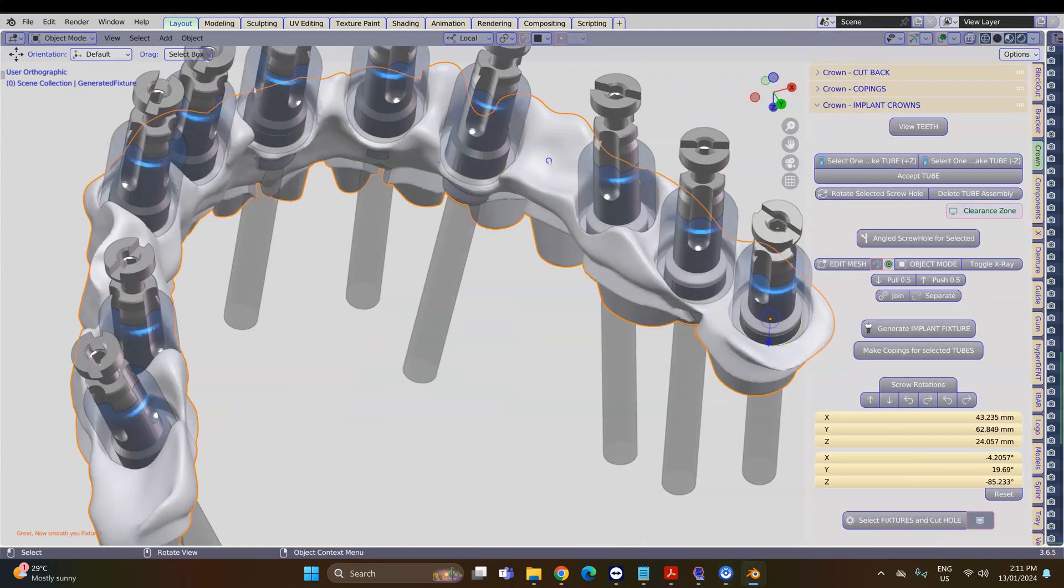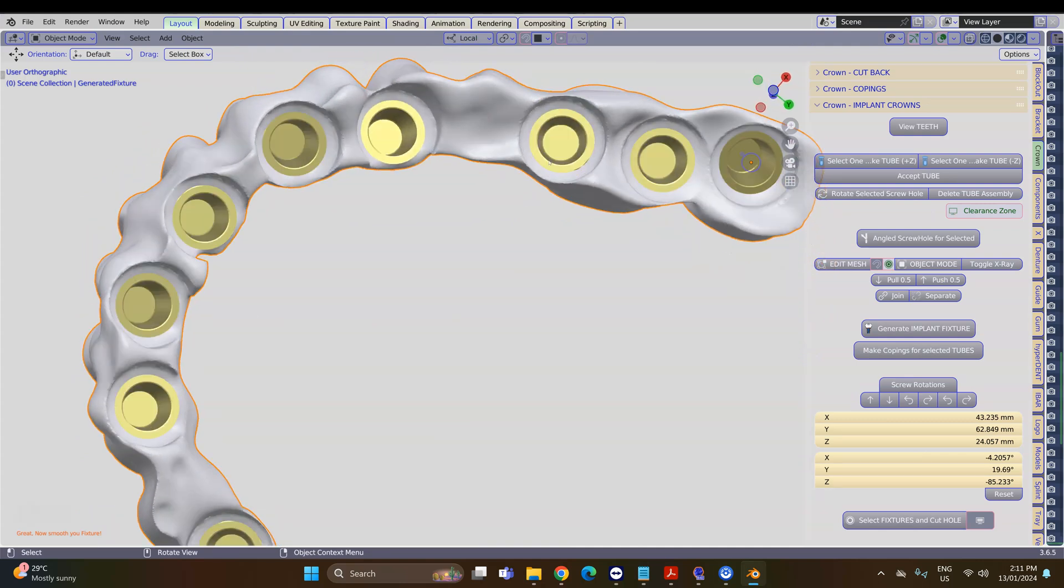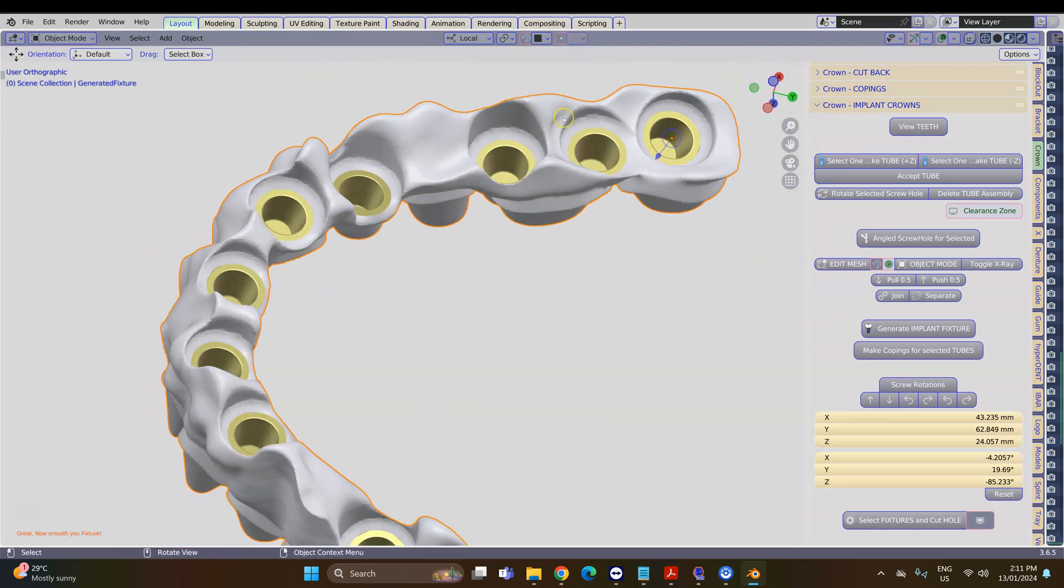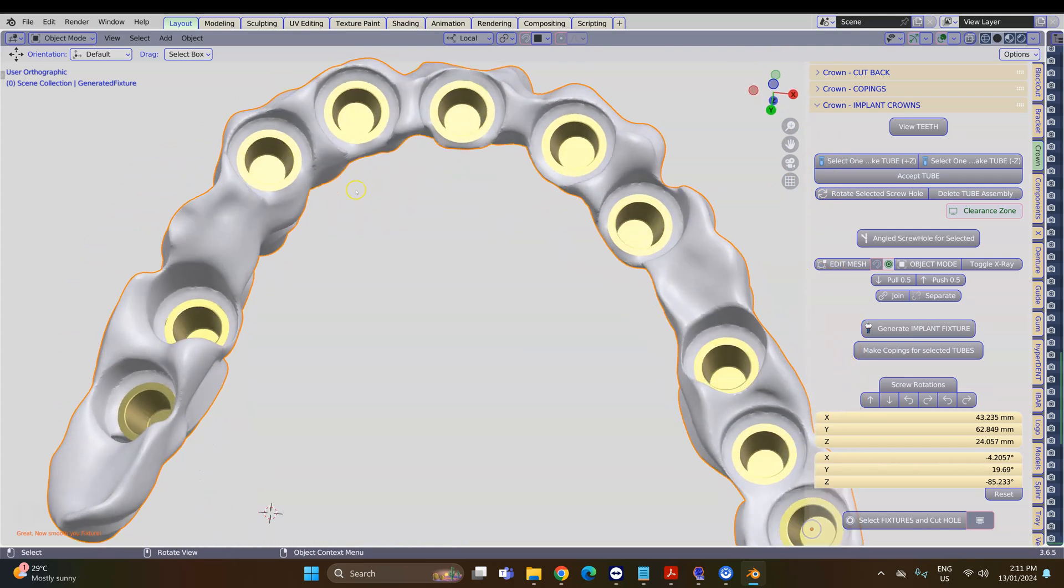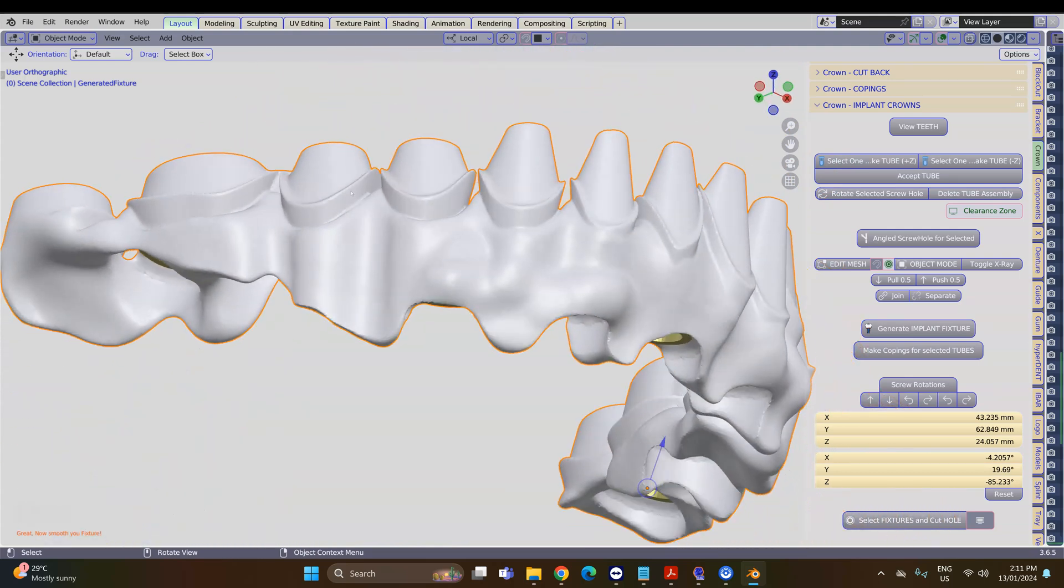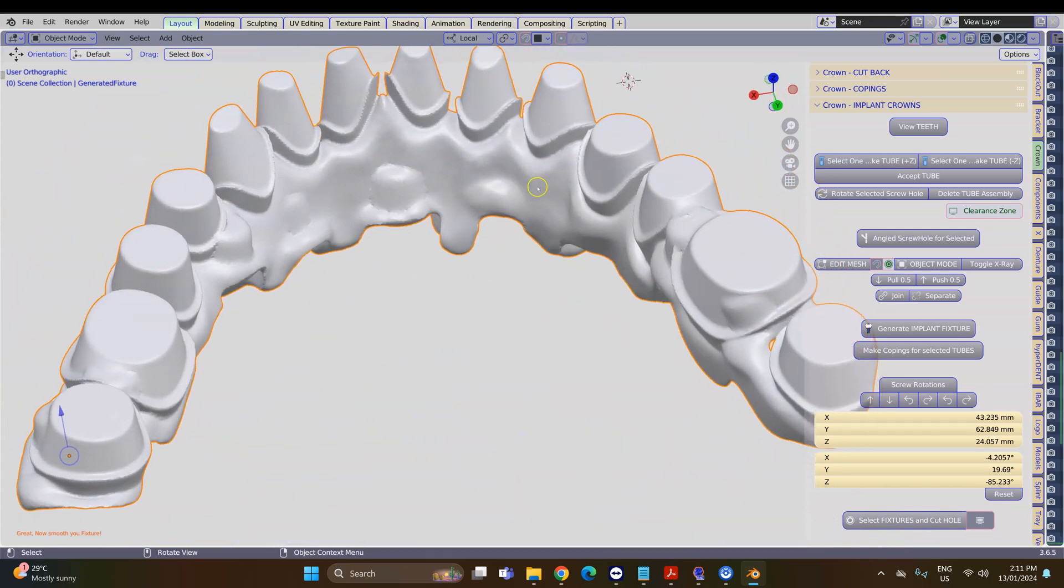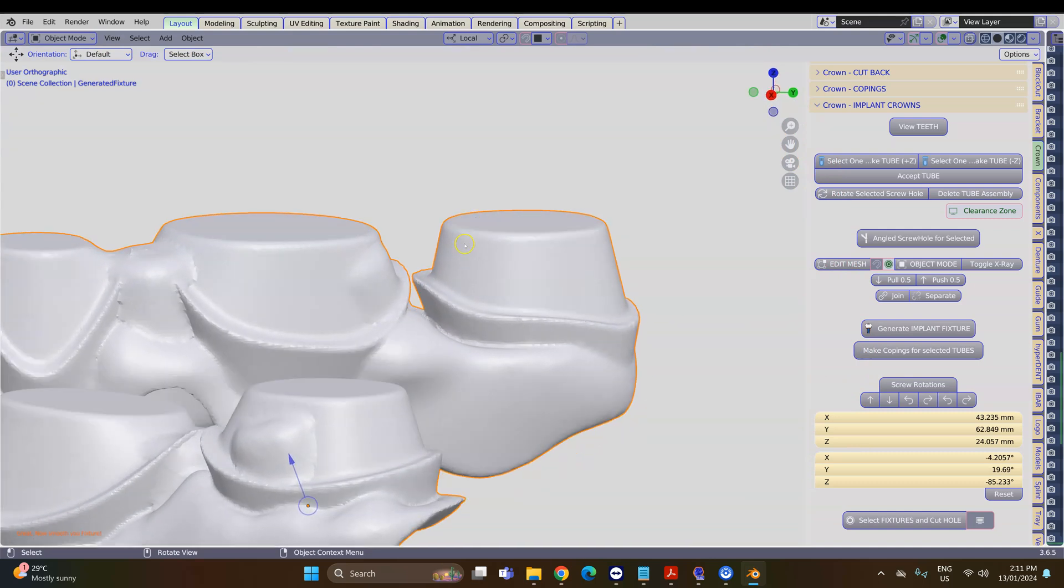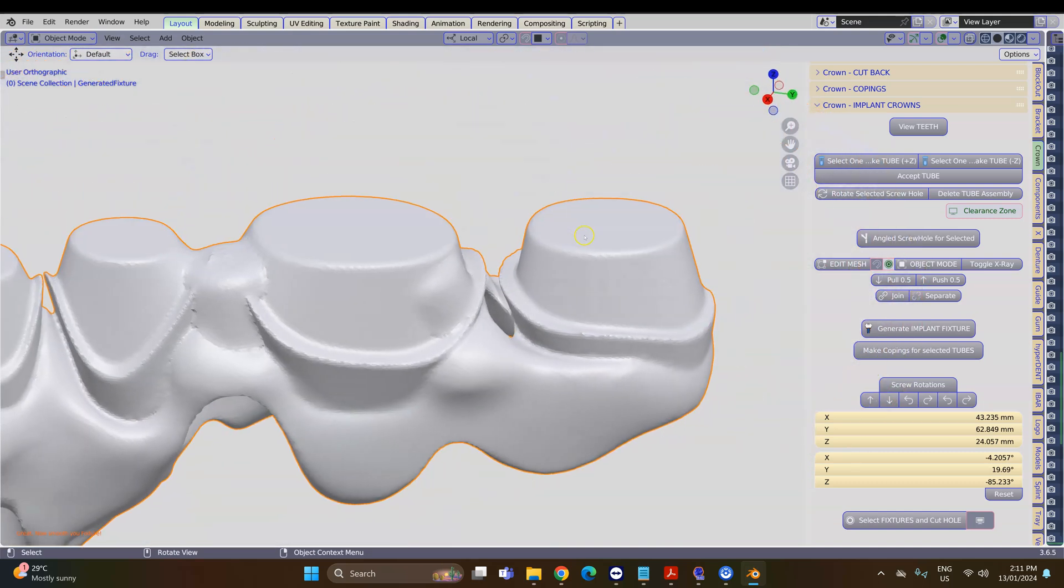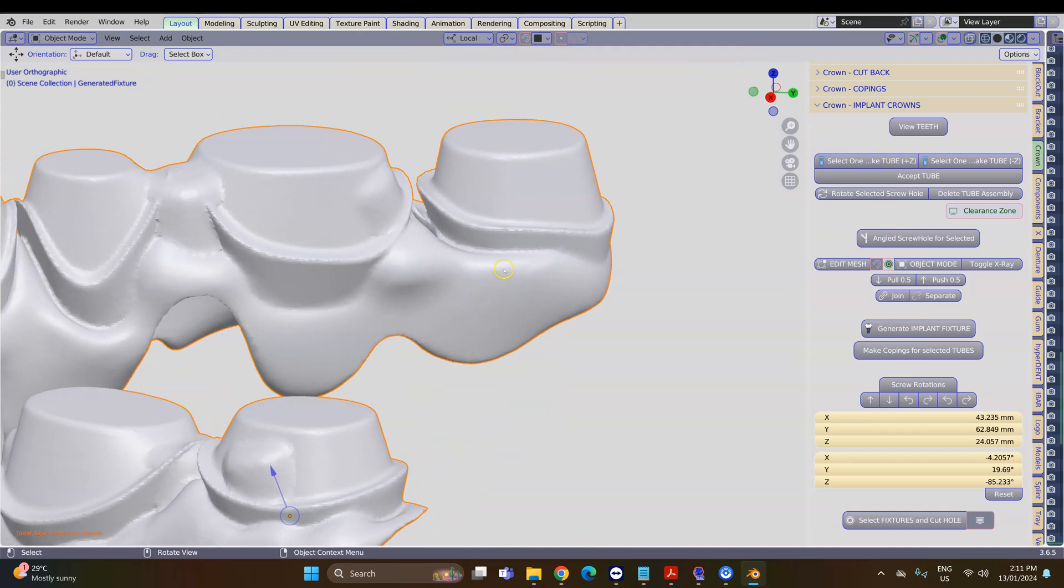Please be patient while this is calculating—it can sometimes take a while. Please also analyze your mesh structure. Here we've got a completed structure which is connected to implants, but I've noticed that we have a small hole in it. This essentially is not good, so we're going to go Ctrl+Z back a few times.